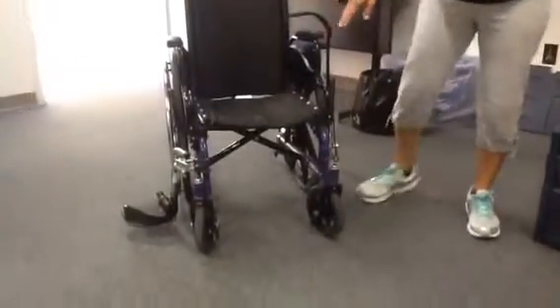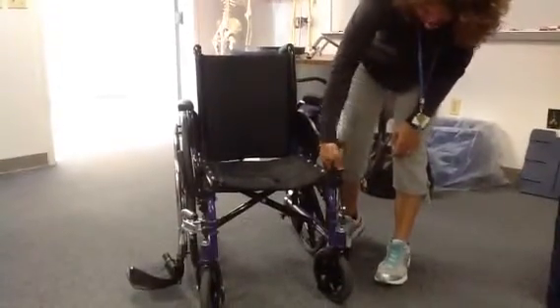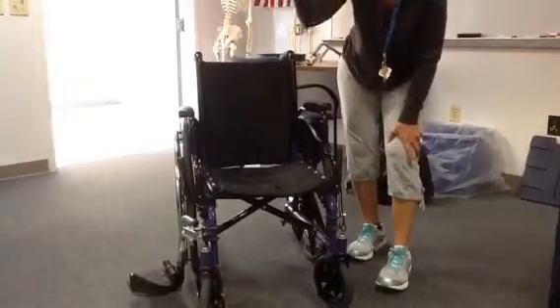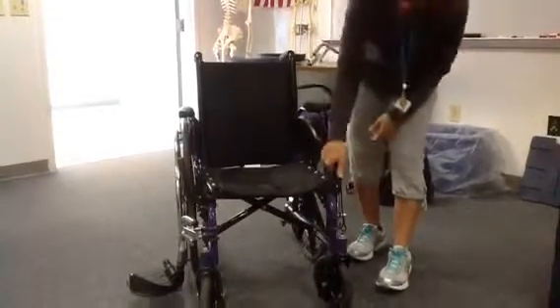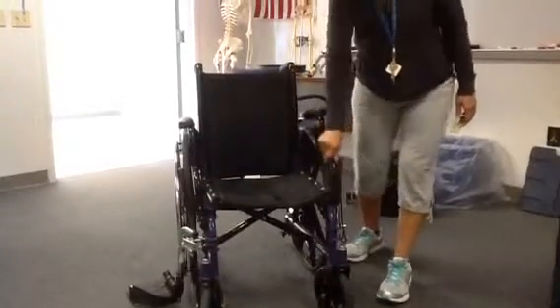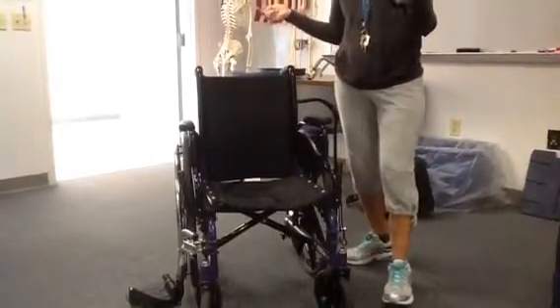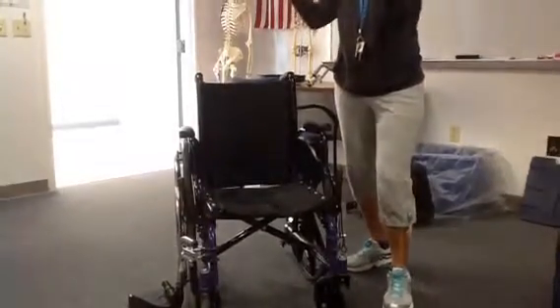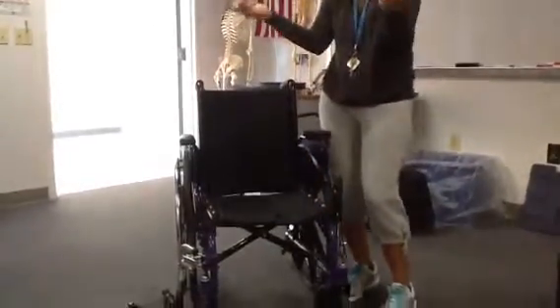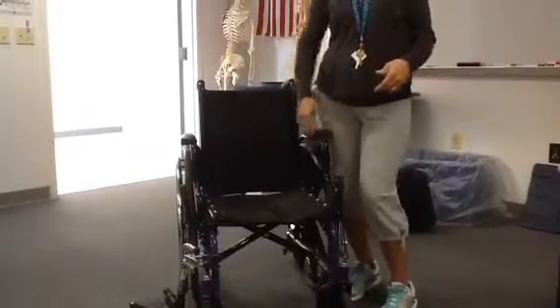Armrests can be different too. This one is a flip-back — it has a little black knob that you turn and it releases the arm out of the frame, and it just folds backwards. Others have a little lever — sometimes called knobbies — where you press them in to release the armrest.